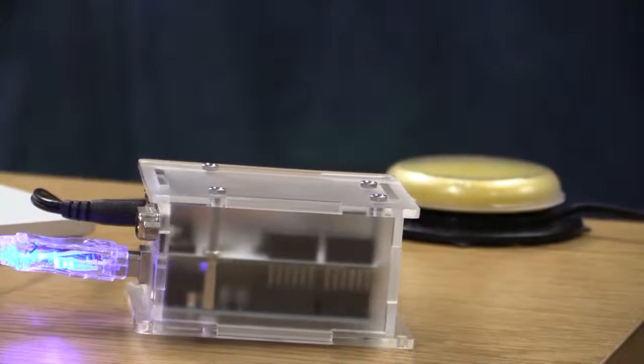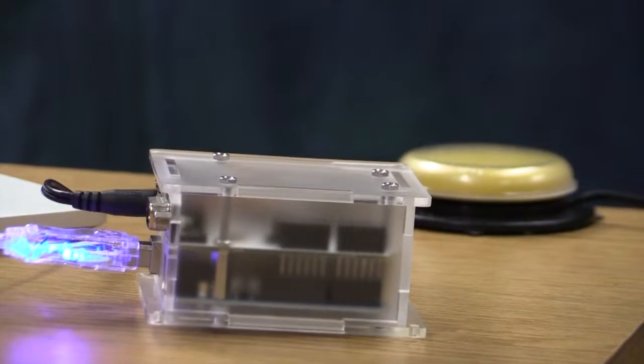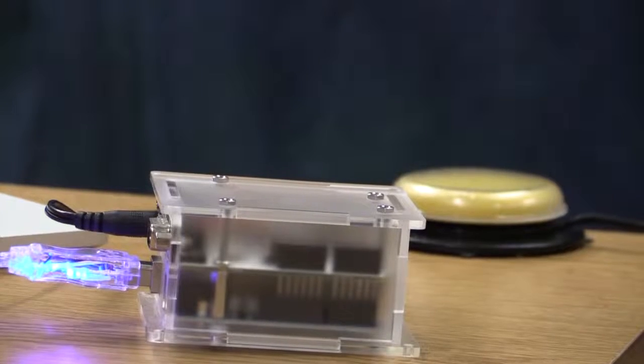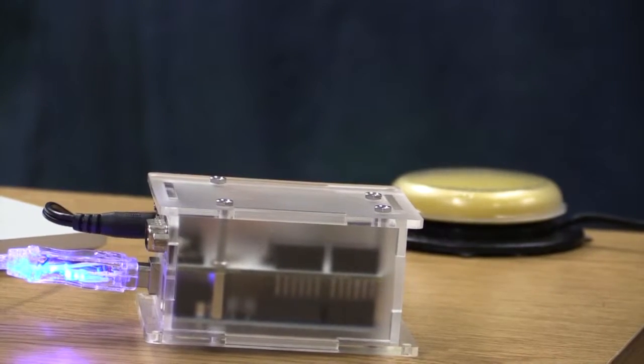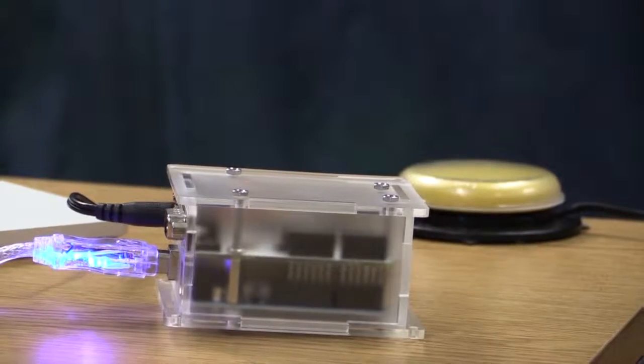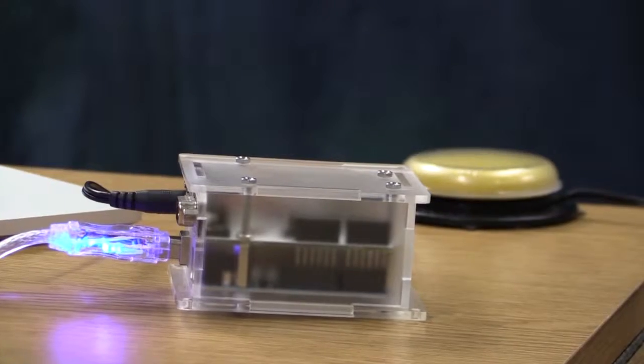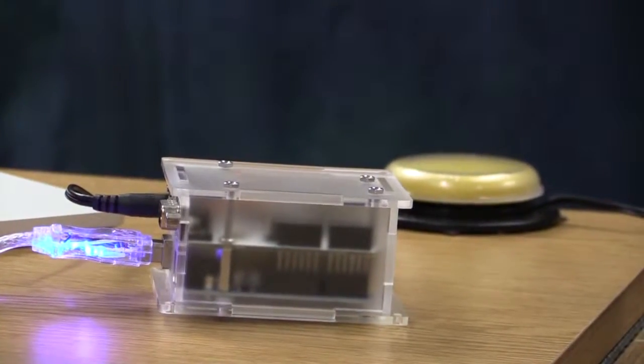The next thing I tried was hooking up a second external switch, just to find out you can't do this. The Tecla has two switch ports, but the iPad sees it as the same source. So it gives a message of, this source is already in use.